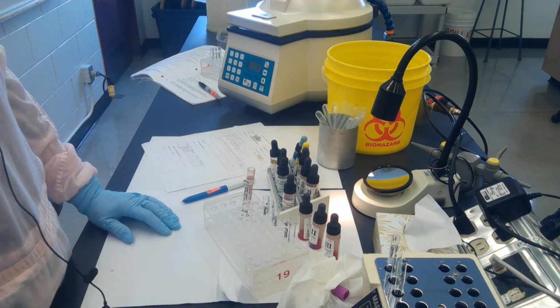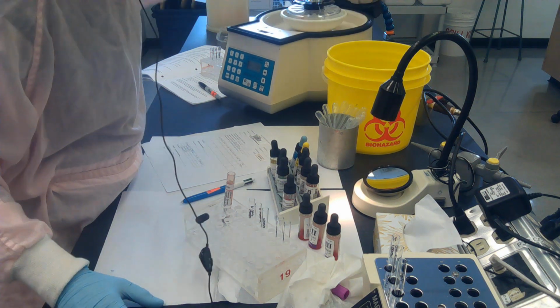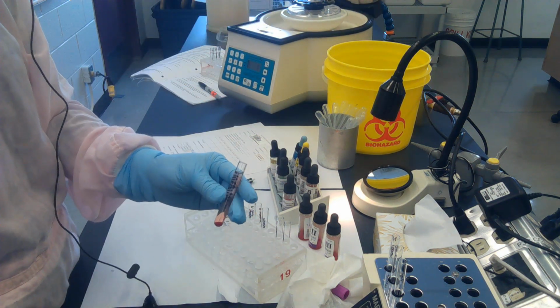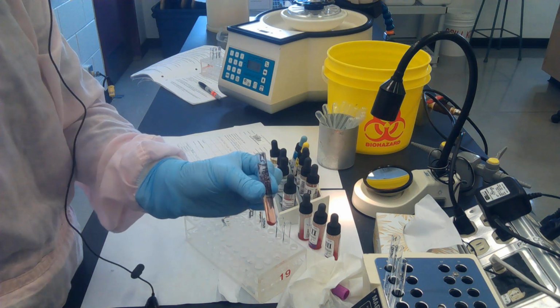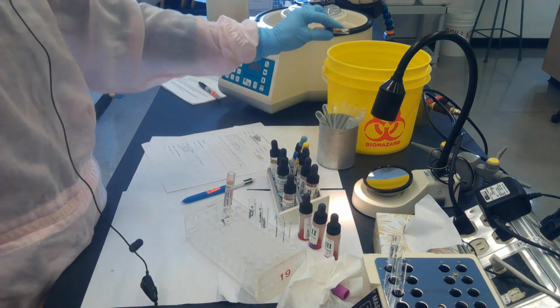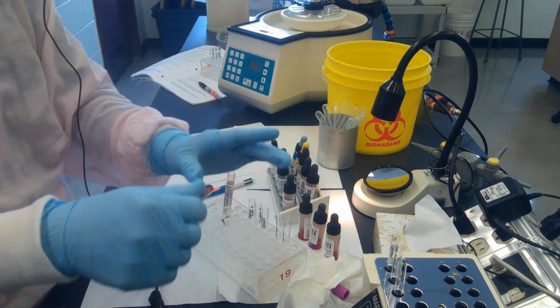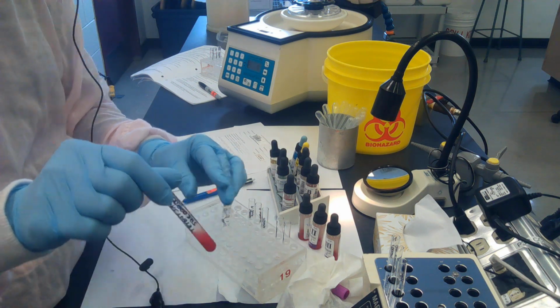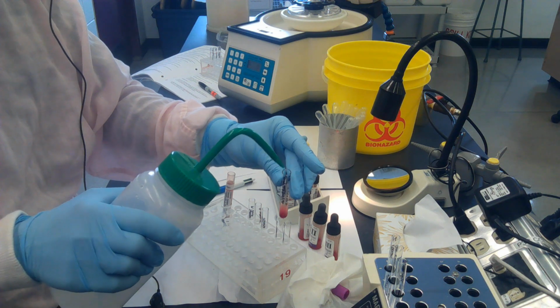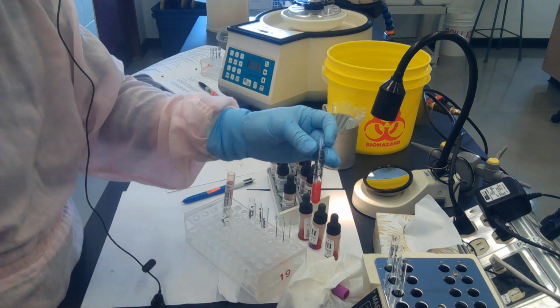In the meantime, I can get to work on my ABO and RH type. I'm not going to show you guys the process of washing and making up a 5% suspension because we've done that previously, but that's after 1 wash. I'll just show you that I'm going to gently dump out this saline. Let's pretend this is our third wash, or however many washes your instructions say to do. So I just mix it up and I add some saline to it so that it looks like 5%. So I've got my 5%.